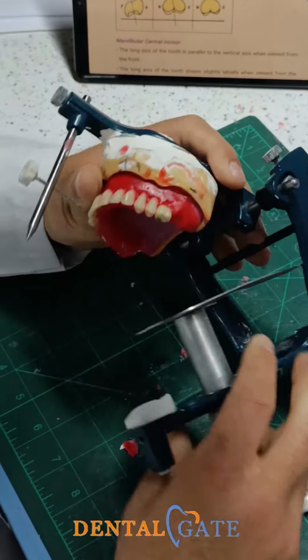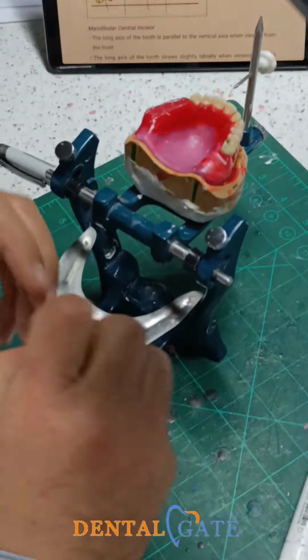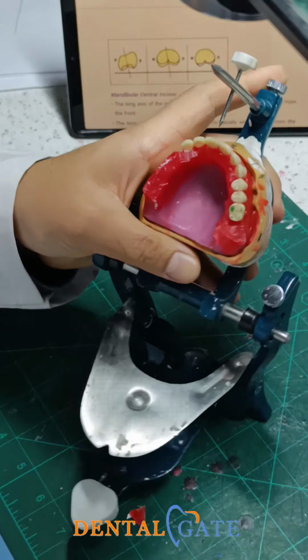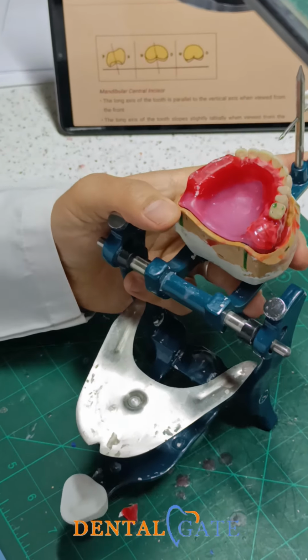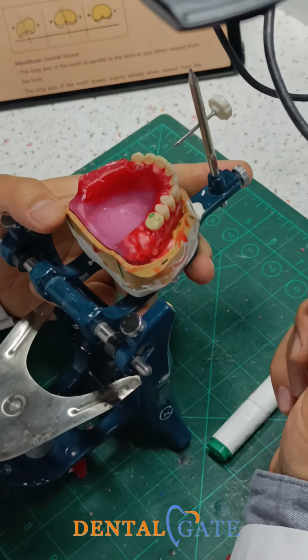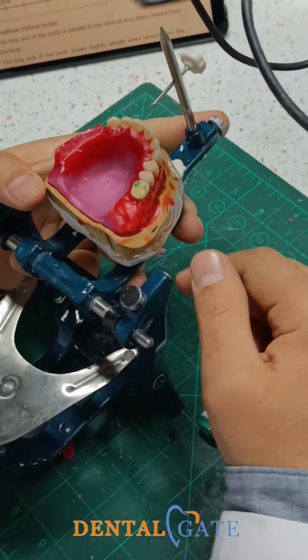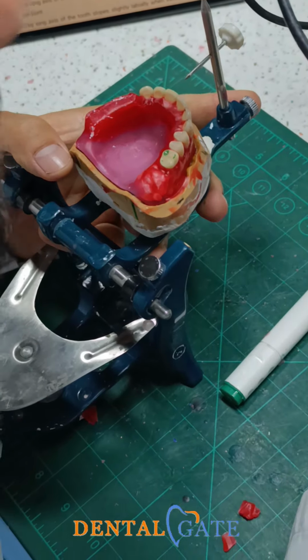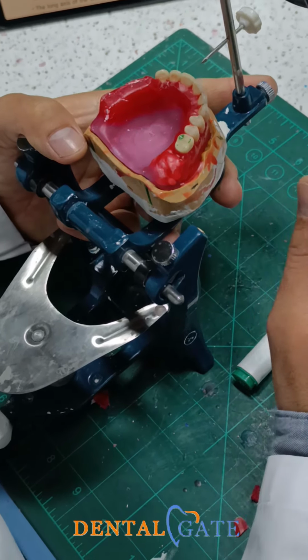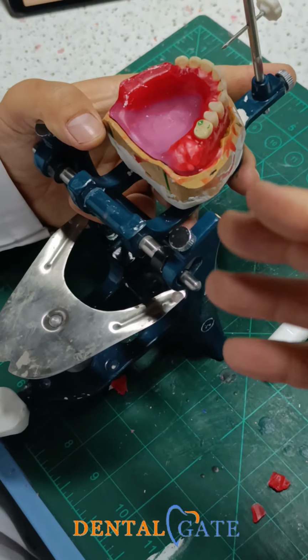Now, when I have this task, prepare sufficient room and a proper wax to accomplish this task. Please don't make your work easy. I mean, be sure the wax has good properties. Be sure there is no contamination here. Be sure there is no severe melting, and don't cool it suddenly within the water. Don't use the water, because you will make a shrinkage. Just make a preheating and make another one.